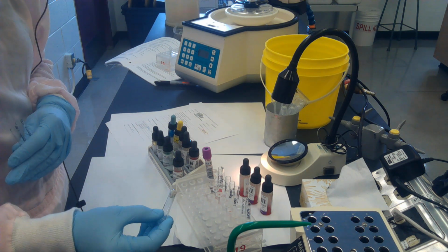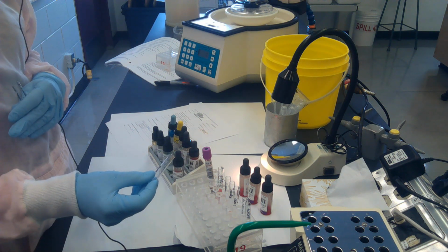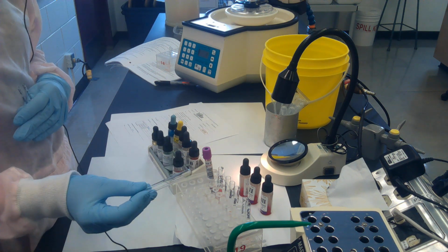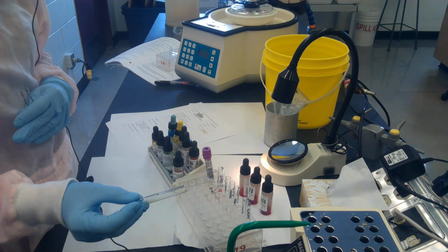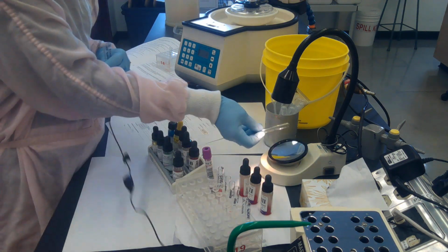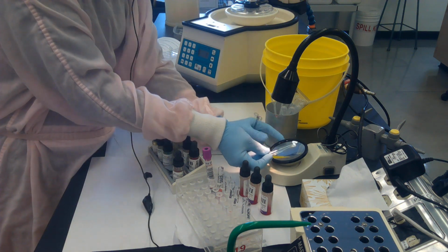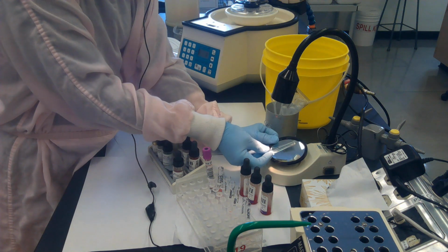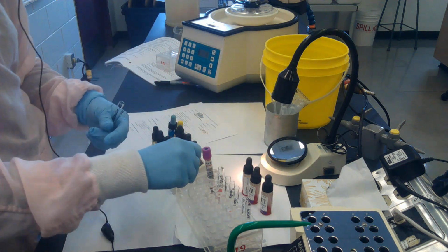So the cells are off the bottom of the tube, so I bring the tube into kind of a horizontal position where the liquid is distributed along the length of the tube a little bit, and then I look under my agglutination mirror. What I'm looking at in the agglutination mirror is the image in the mirror, as opposed to looking at the tube itself. So I'm looking at the image in the mirror, and I don't see any reaction there.